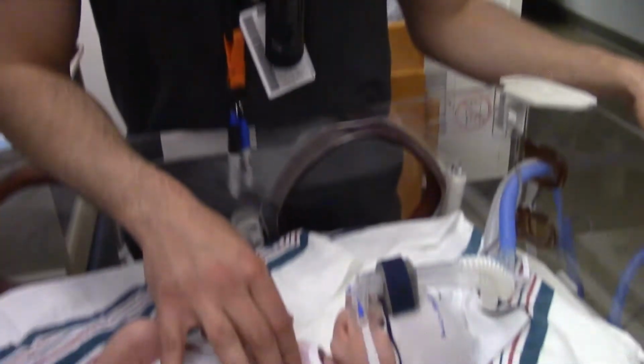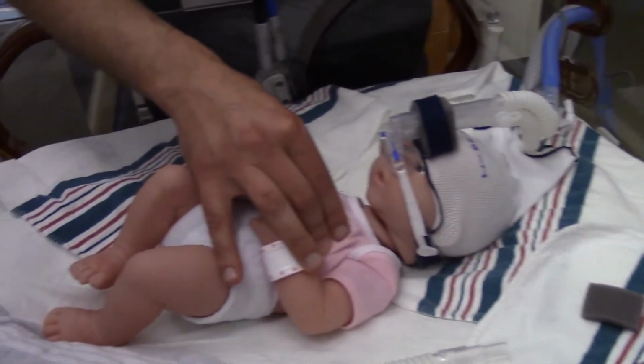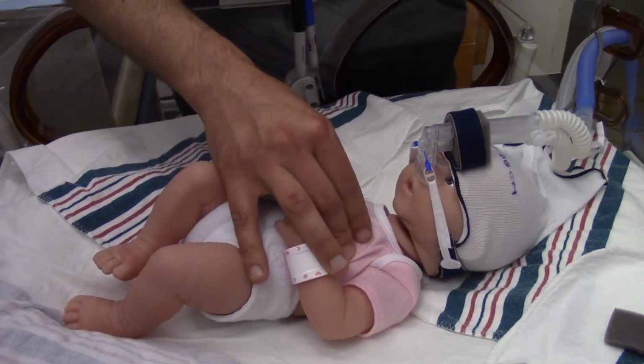If we're on a CPAP of 7, their physiological peep is 5, and they take a big deep breath and they try to cry. Well, what they're doing at that time is they're building up their lungs and they're holding their own peep. They're increasing their intrathoracic peep by upwards of 8 to 9 sometimes. So if you're on 7 and you've got a baby that's increasing their own personal CPAP up to 7 or 8, you could potentially be giving that baby more CPAP than you're anticipating.